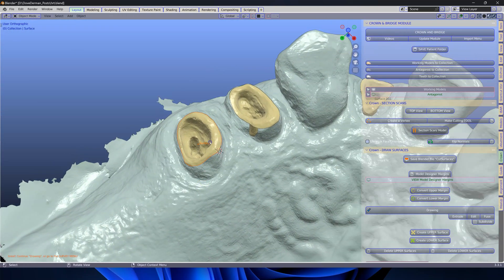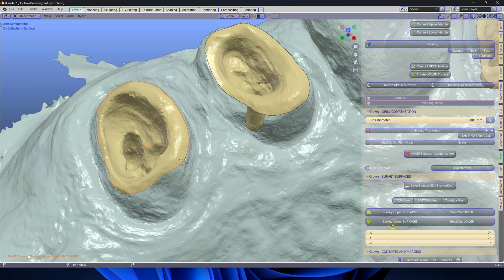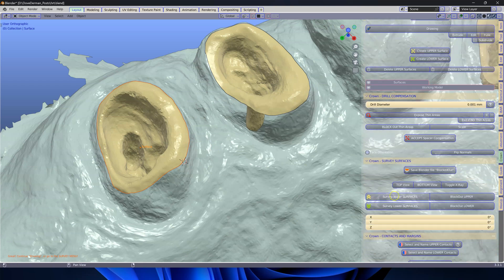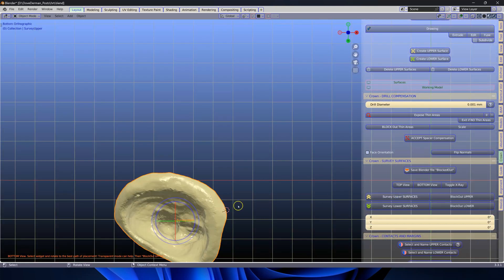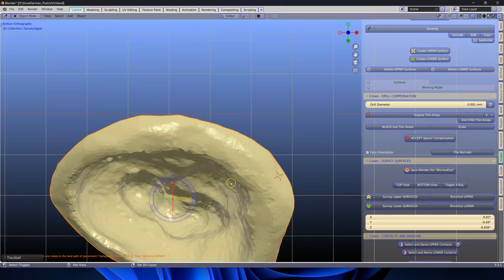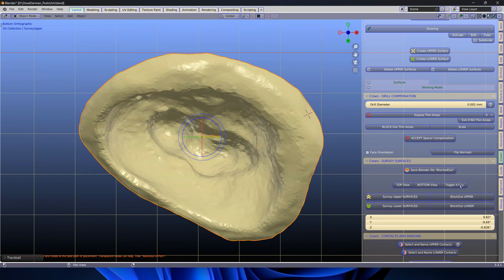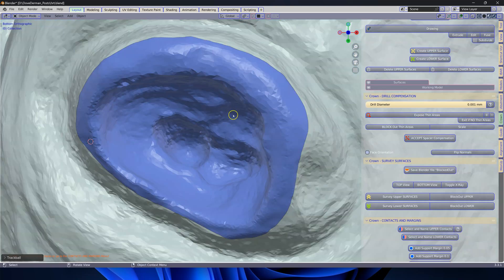Next we're going to survey them individually. Go to the survey, look down the path of the route. This is very important. In transparent mode we can actually see where these undercuts are lying. Click on block out. We're going to do this three times.